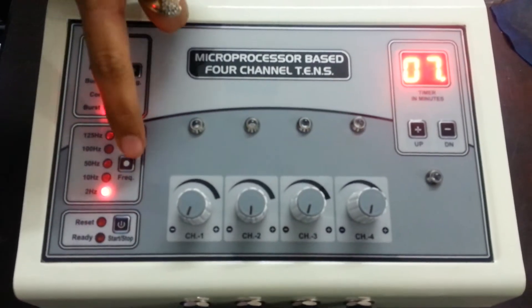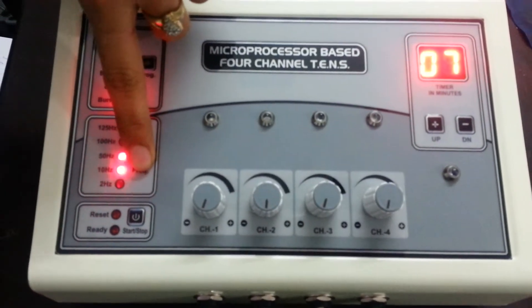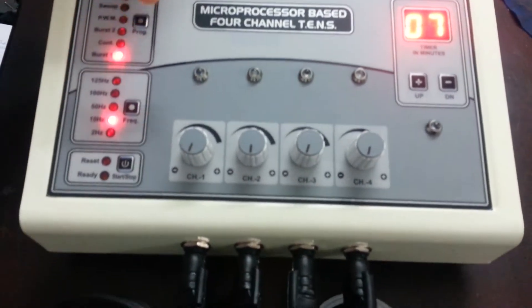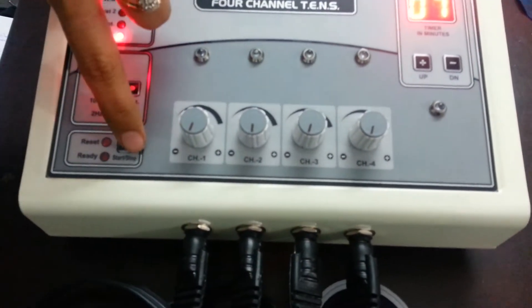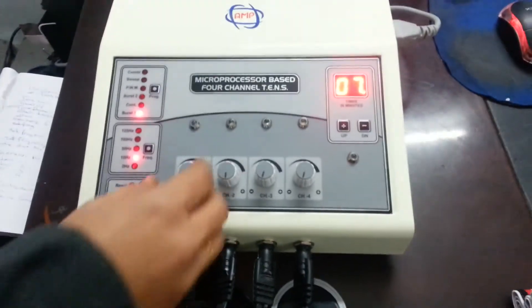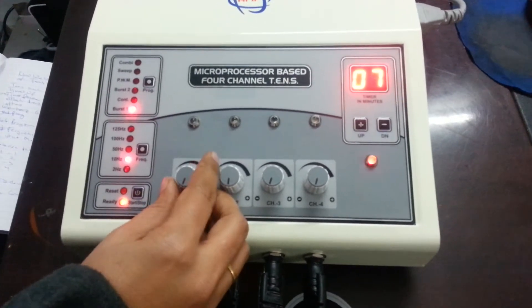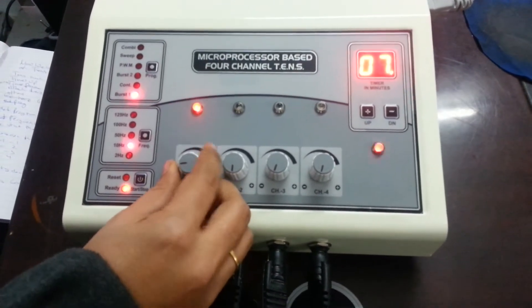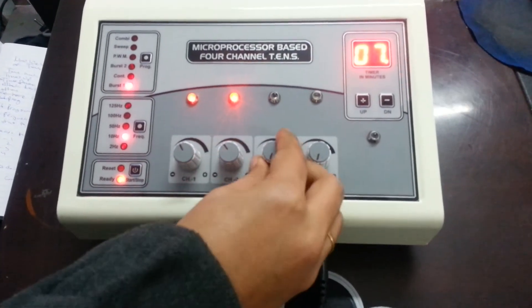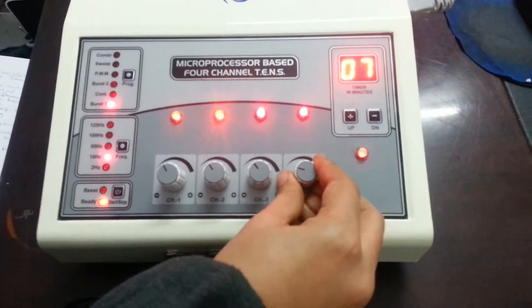Set frequency according to your need. Machine on. Increase the intensity as per your need: channel 1, channel 2, channel 3, channel 4.